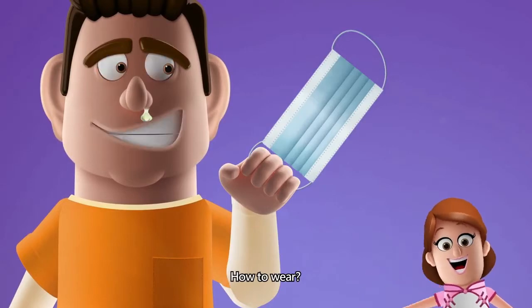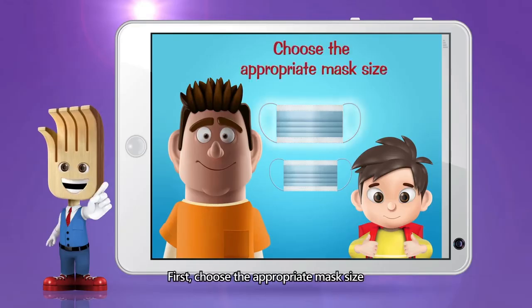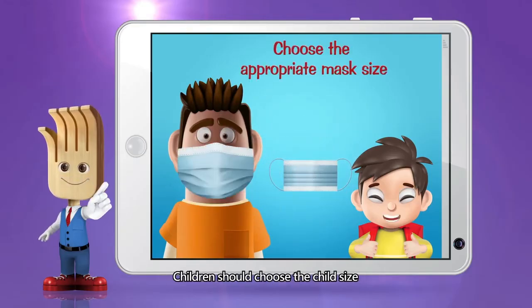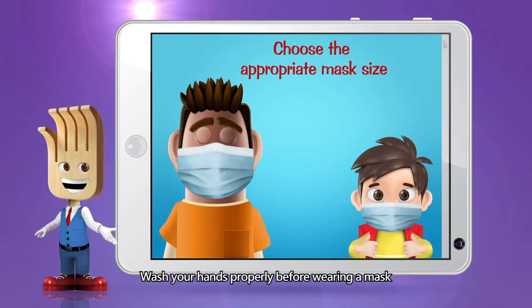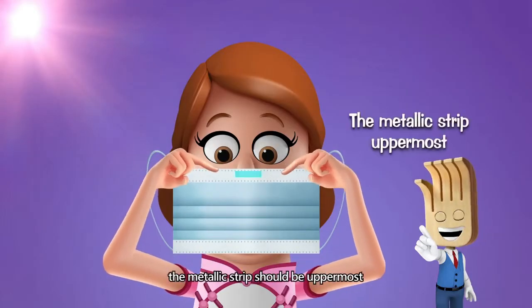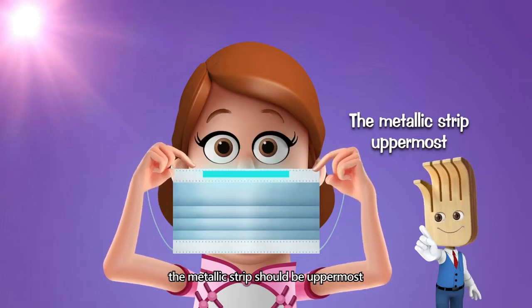How to wear? First, choose the appropriate mask size. Children should choose the child size. Wash your hands properly before wearing a mask. When you put on a mask, the metallic strip should be uppermost.